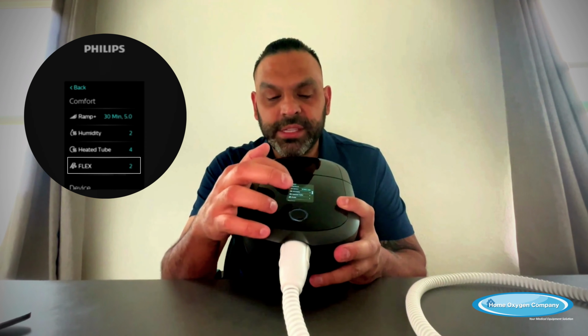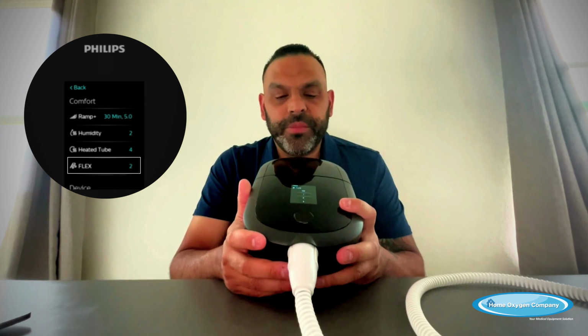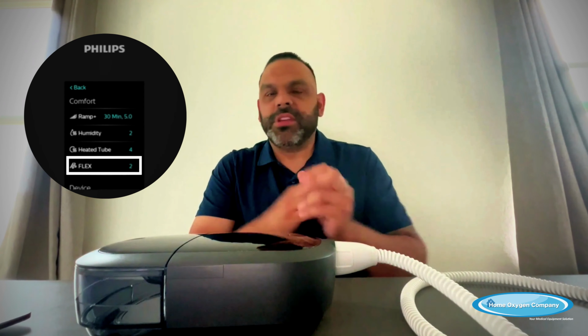If you push on flex, you have the option of going off, 1, 2, or 3. So for example, if you set your flex to number 2, and your pressure is set to 9, what happens is that when you inhale, it's going to give you a pressure of 9, but when you exhale, it's going to drop down 2 pressures and give you a pressure of 7.